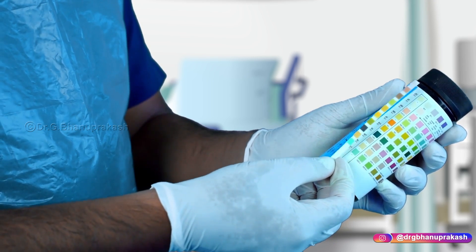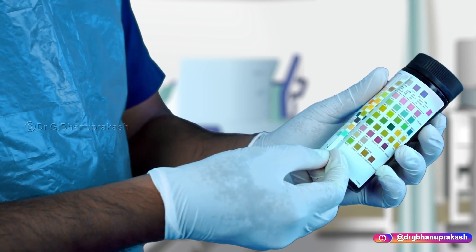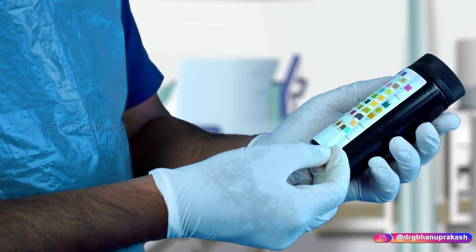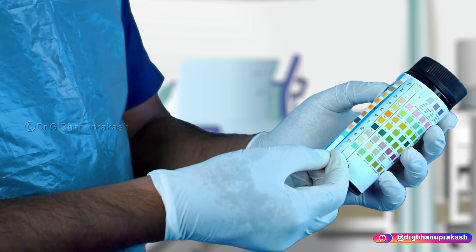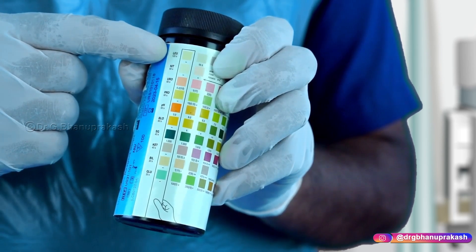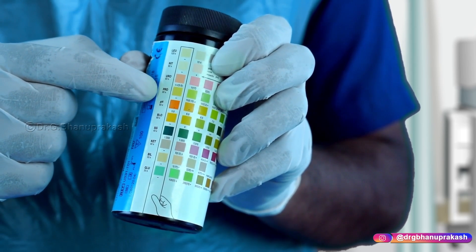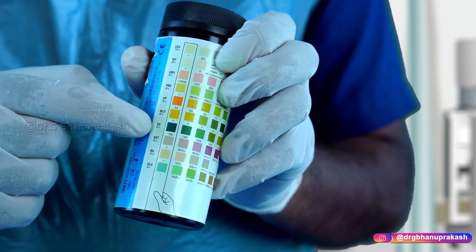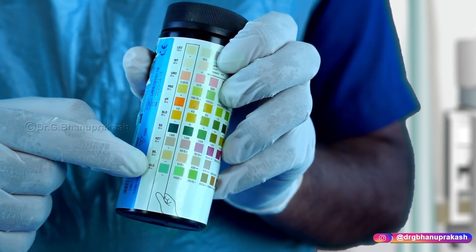Interpret each test at the appropriate time interval using the dipstick analysis chart given on the box. Interpret for leukocytes, nitrite, urobilinogen, protein, the pH of the urine, hemoglobin, specific gravity, ketones, bilirubin, as well as glucose.